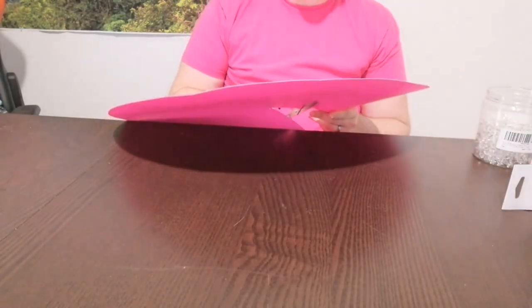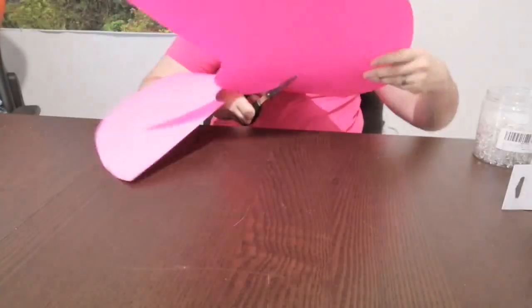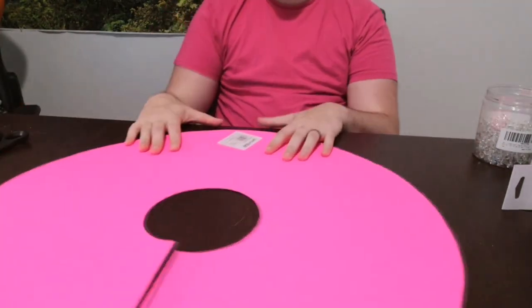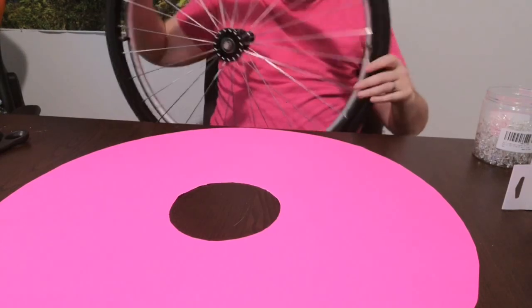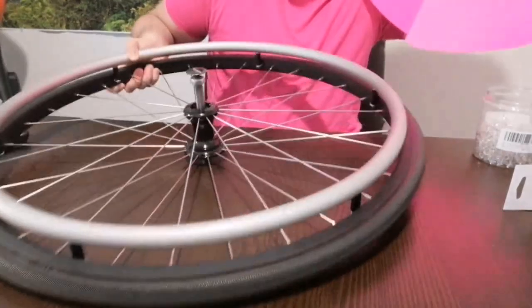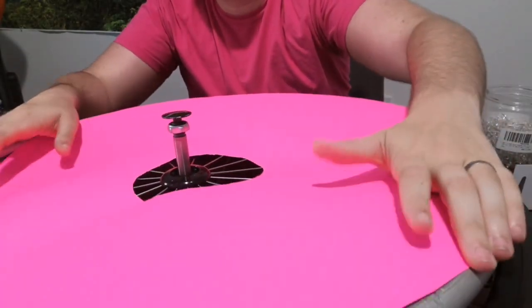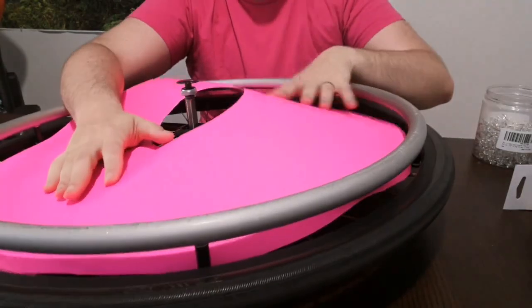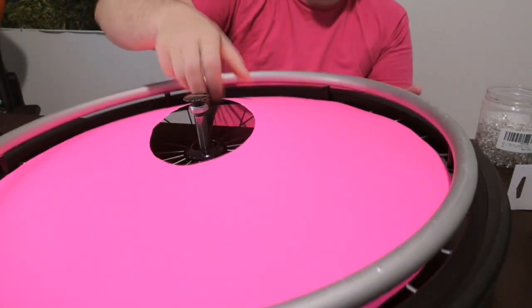Spokes are not actually flat — they're more shaped like a percussion cymbal, like the things we clash together at a football game. So we have our donut shape with the slit down the middle. This is the actual side that I'm going to have facing the world from my chair. You can overlap the slit just a little bit to make it a little bit concave so that it will fit on the wheel. Mine is still a little bit big, so I'm just going to trim around the edge a little bit — you can tell because it's kind of exposed out like this.